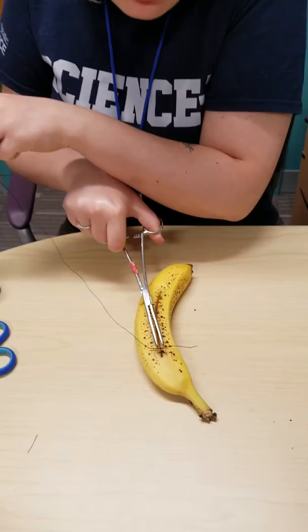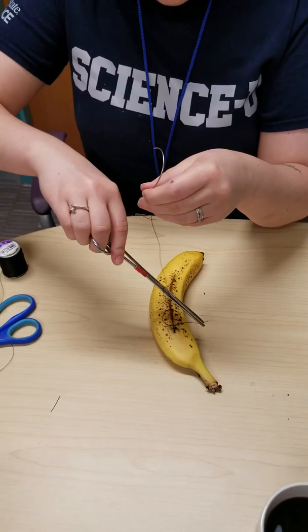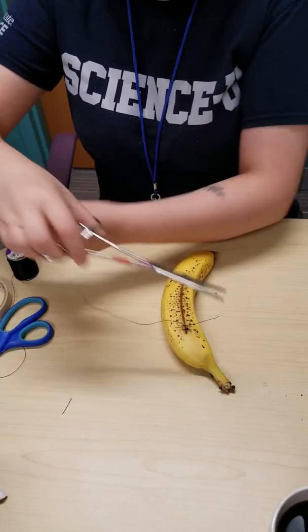We did two throws away from us, now we're going to do one towards — so that's one loop towards ourselves. Grab the end of the short end, pull tight. And that's one knot. You can see how small it is compared to when we used the big string.